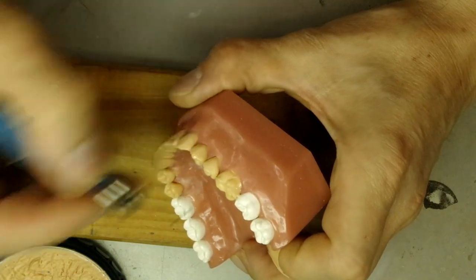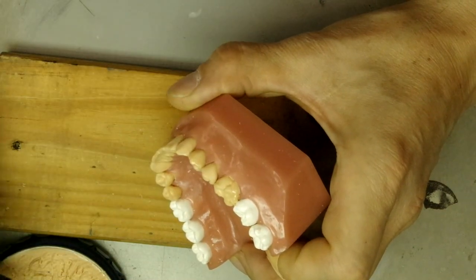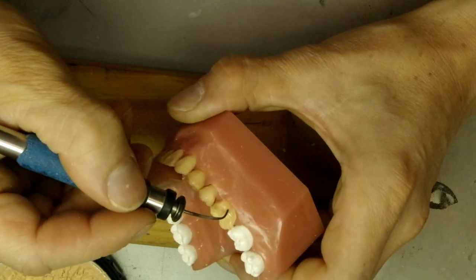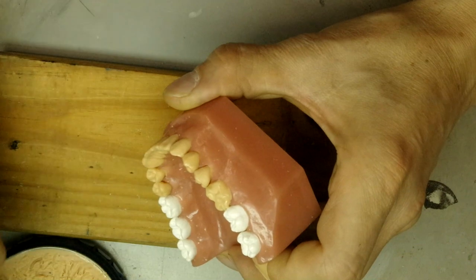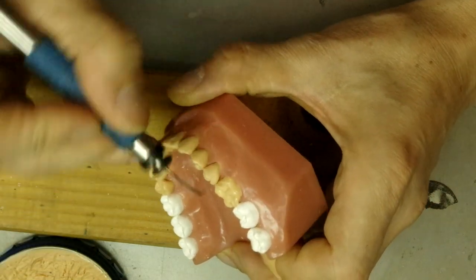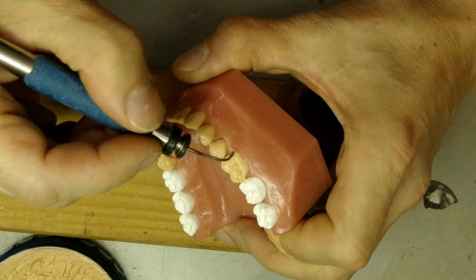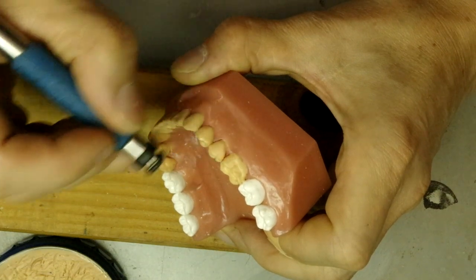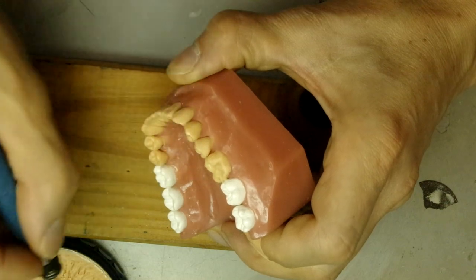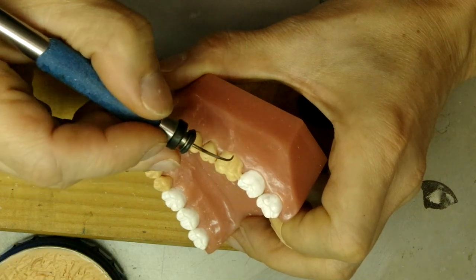Then we go ahead and do the height of contour. In some instances you have a buccal pit right at the end of the buccal developmental groove, right in this spot where it ends. But most of the time you don't have that — you just have the buccal developmental groove, and then the distobuccal developmental groove right here.